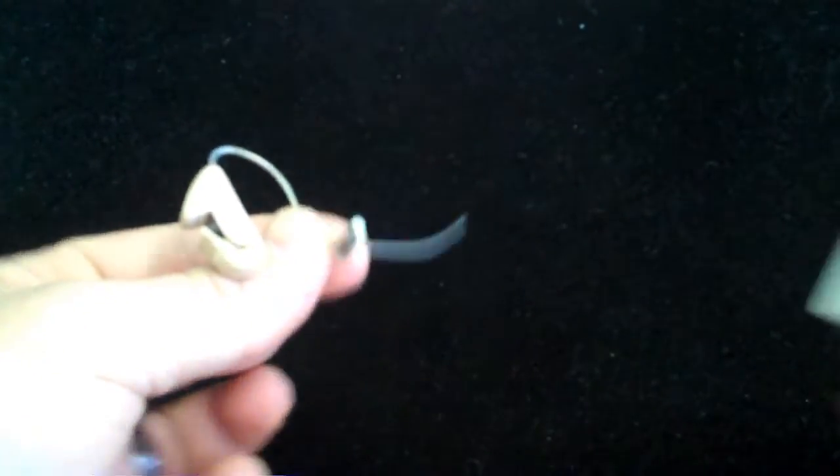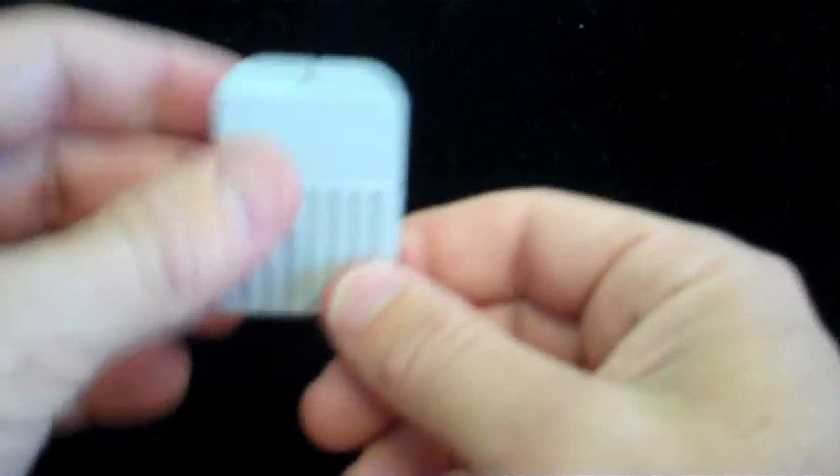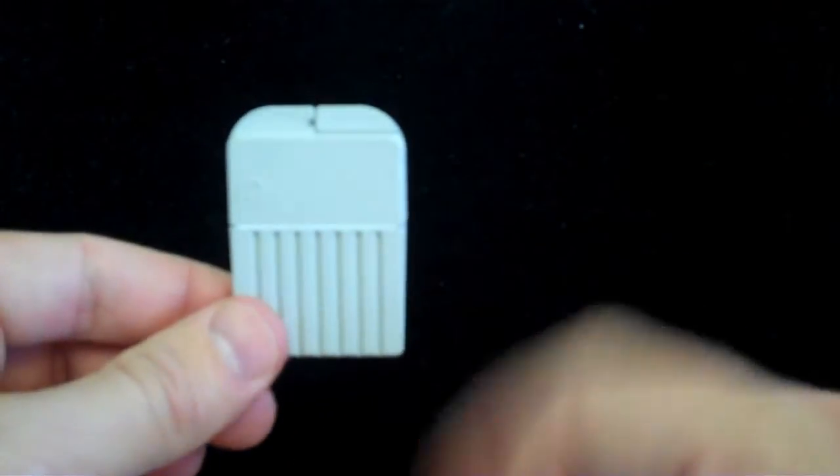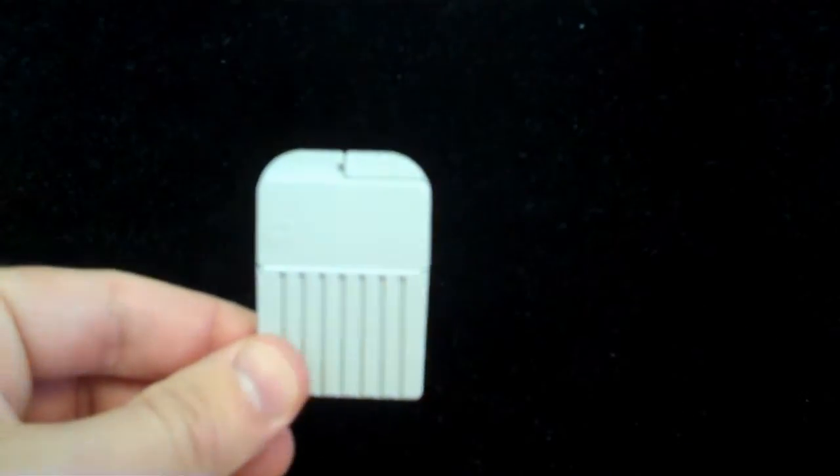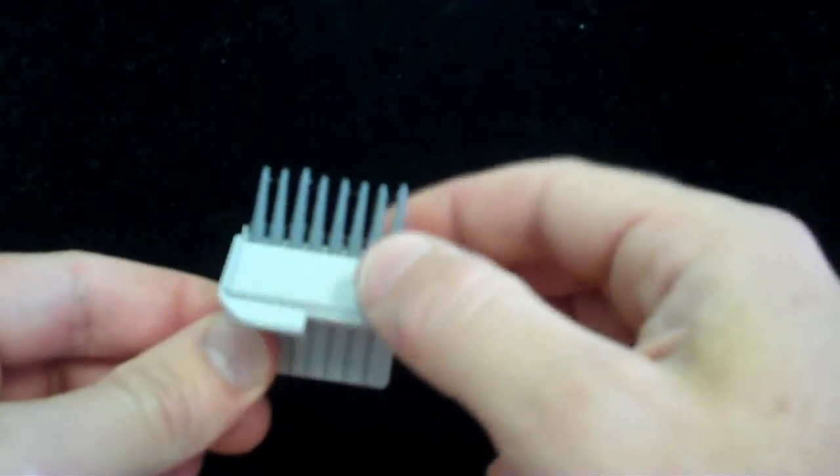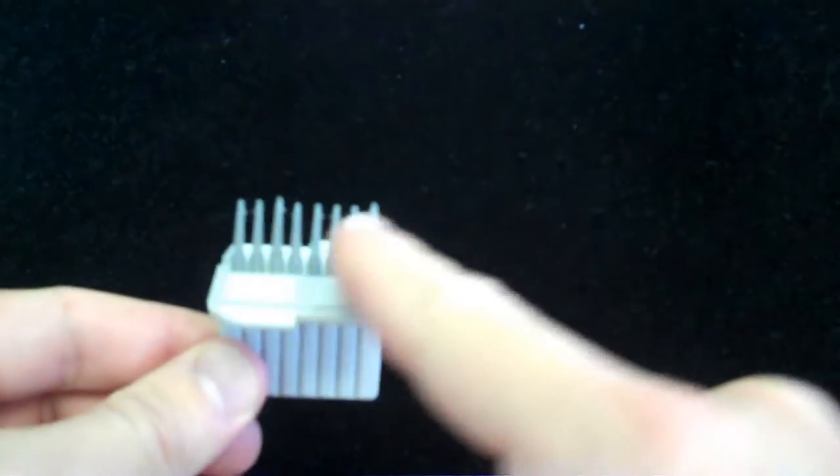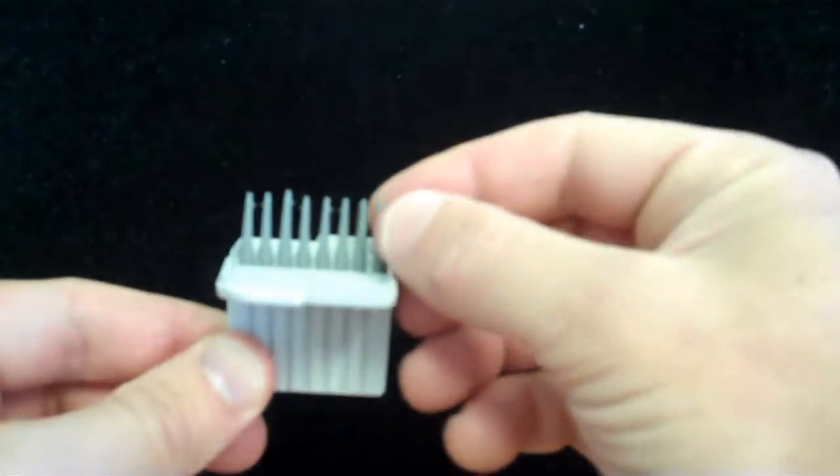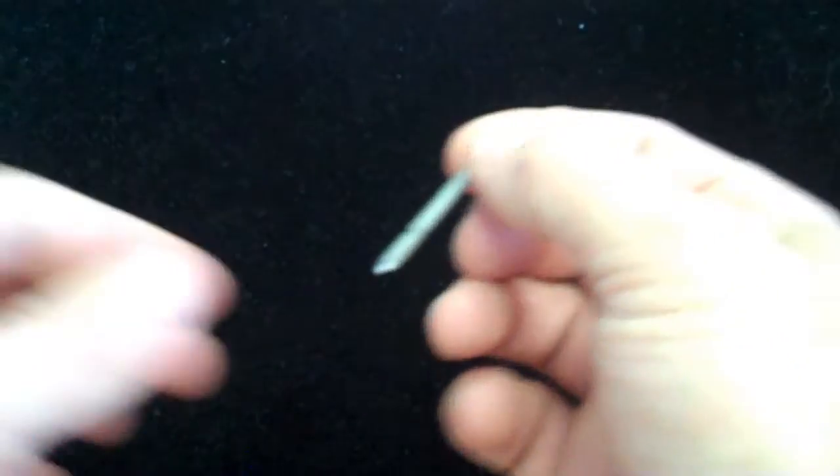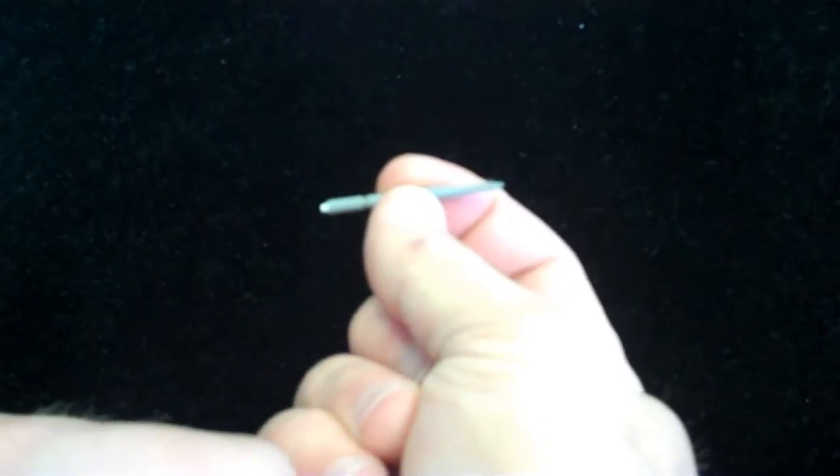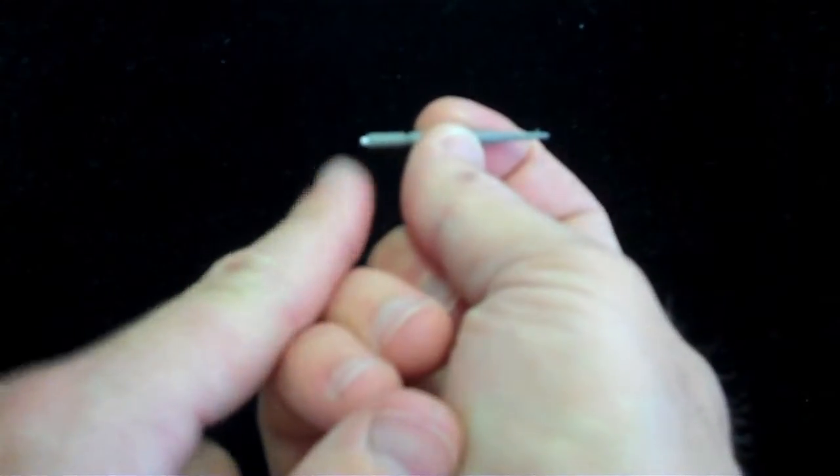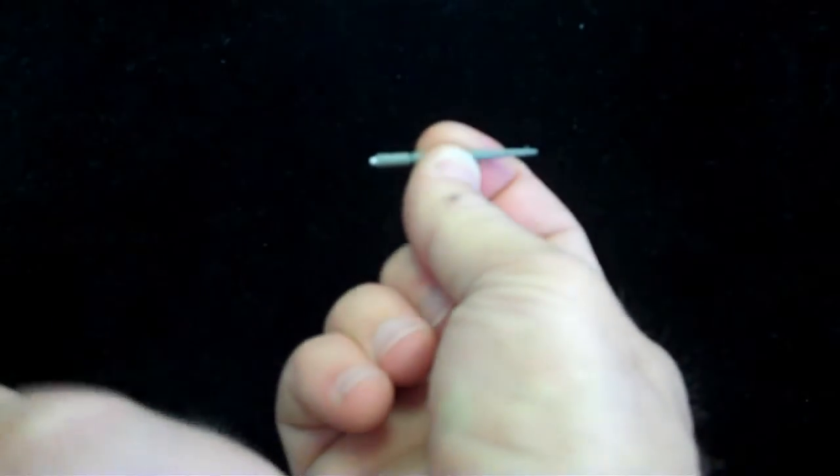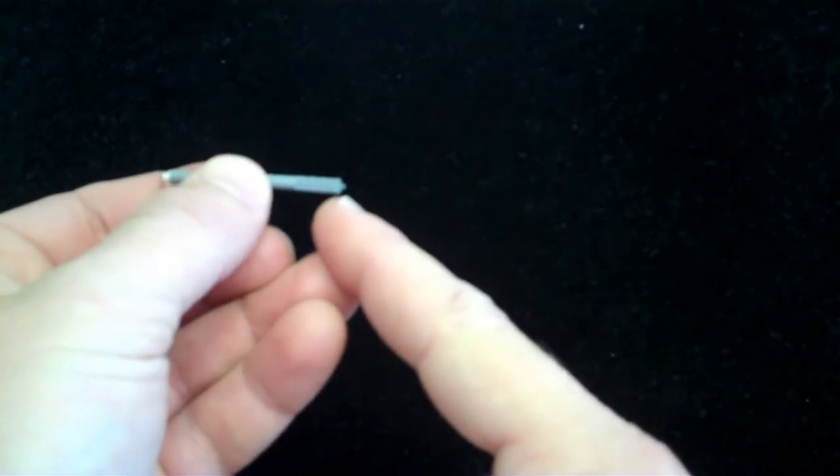Now this particular type of wax trap comes in a case like such. You first open up the case, revealing lots of tools. We take one of those tools. You'll see on one side of the tool has a new white filter tip. The other side has a very little hook.